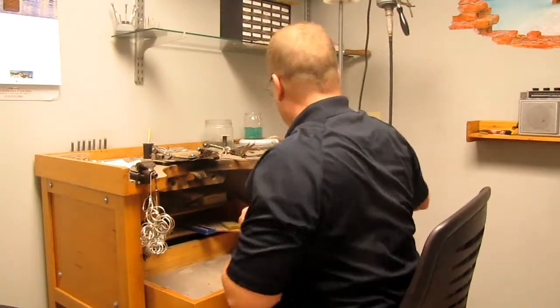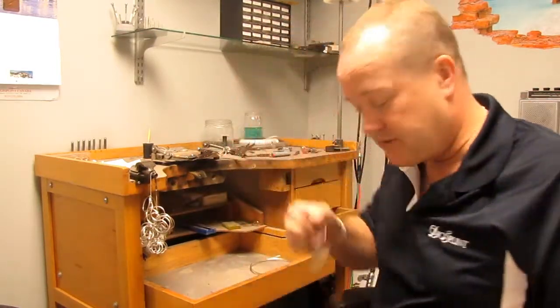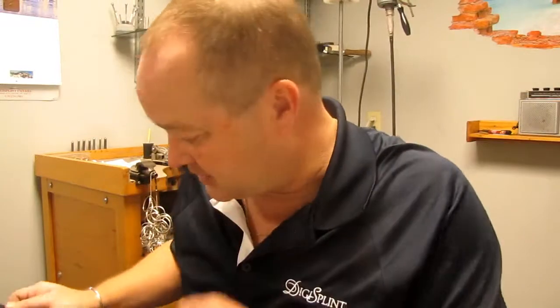Hey folks, my name is Derek. I'm the fellow in Canada that builds custom orthopedic splints out of silver — splints that don't look like splints, they look like rings. It's a combination of rings to stabilize joints, support joints, or position them to take away pain. Most of the splints I've built are directly related to Ehlers-Danlos Syndrome, and that's what I'm here to talk about today.